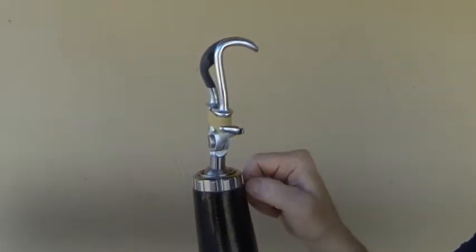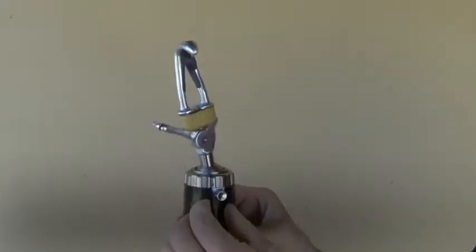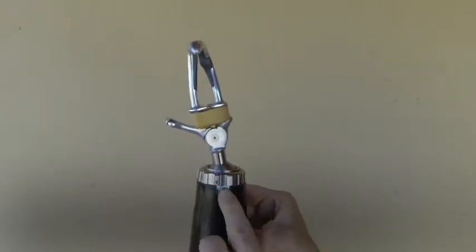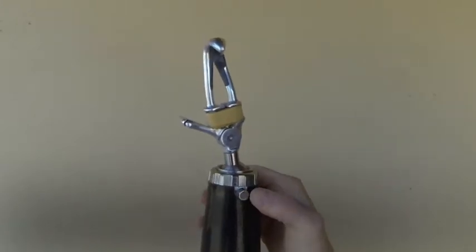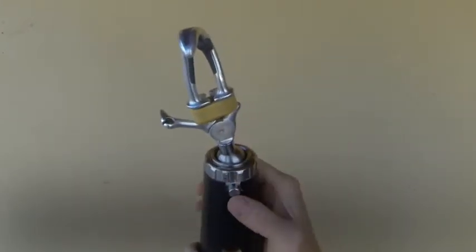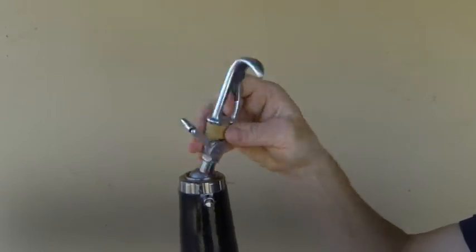If it's locked and you don't want it to move, you can turn the button a little bit so it can't be depressed. Turn it back again so that the slot is lined up, and then when you press it, it can be unlocked again.